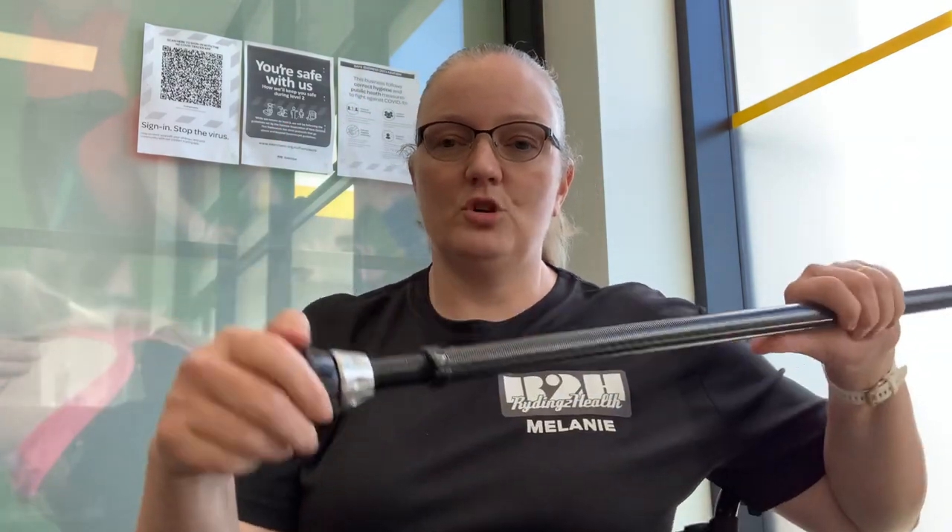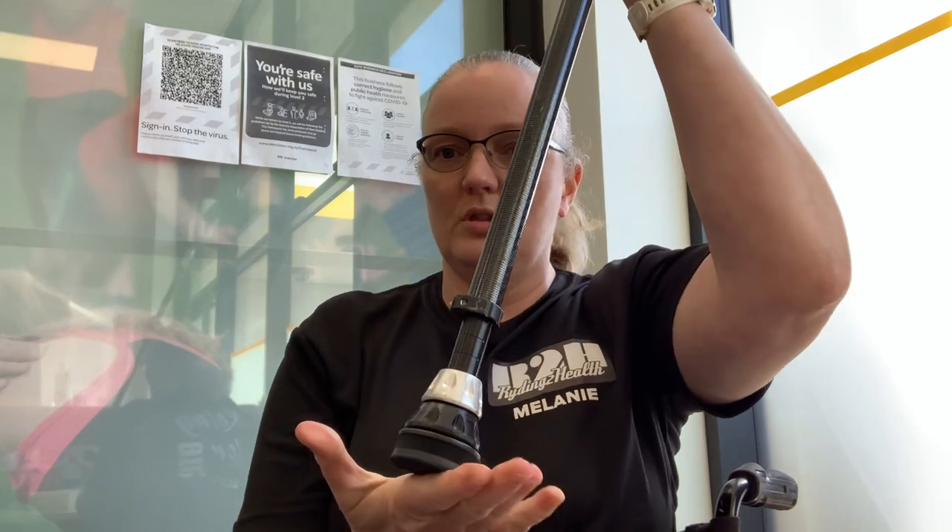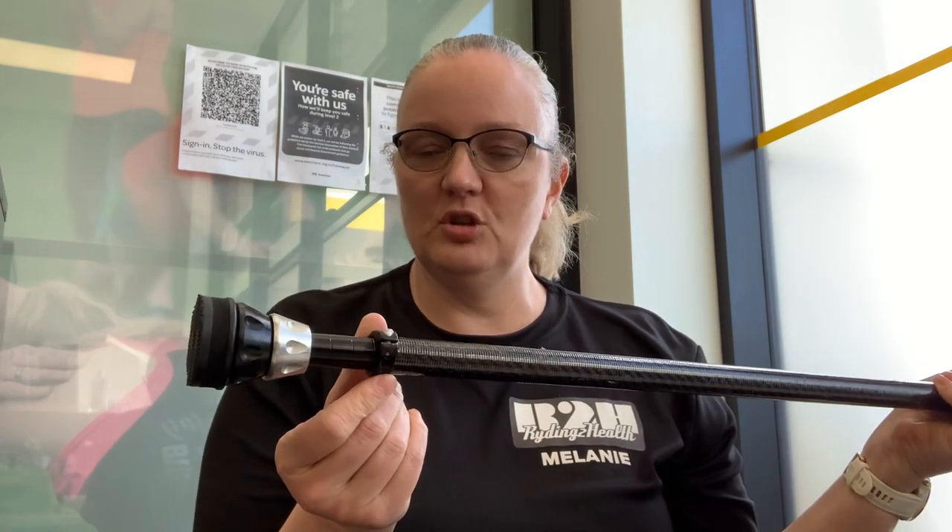They are also very, very sturdy. When the opening is at the front and you lean forward, the opening opens a little bit - on the side I just don't have that. I totally trust these crutches with only one foot. I've also got different ankles for my crutches so these ones twist and bend like ankles, making it better and less slippery when traveling through. I've got the normal rubber bottoms called tornado tips, and a shoe that goes over the top with a jagged bottom that is anti-slip for muddy surfaces and off-road. You can also get snowshoes and ice shoes for these crutches. I've seen on the Side Sticks Instagram somebody who went up Kilimanjaro with one leg and these crutches to the top - so they are the bee's knees. They are not cheap.